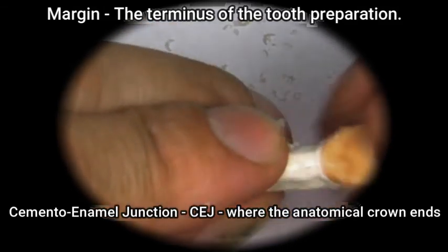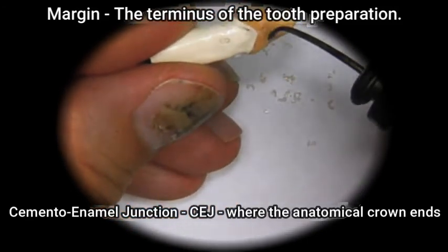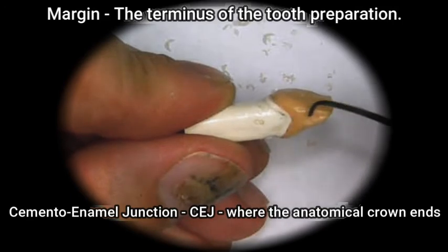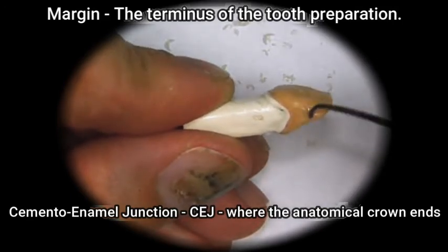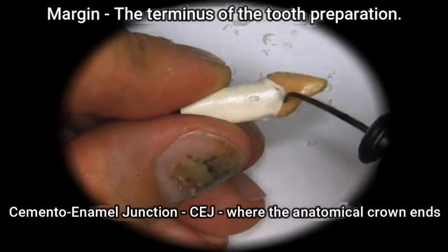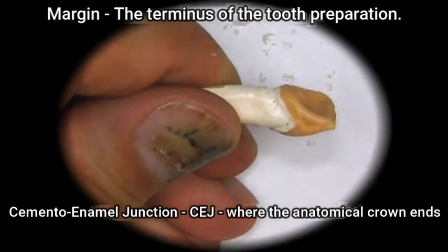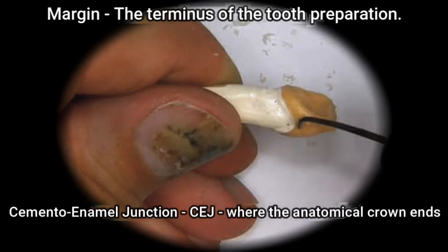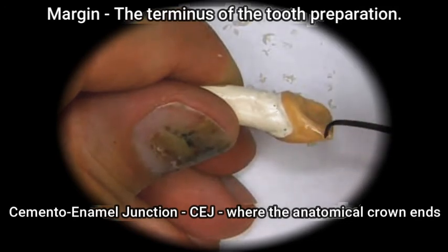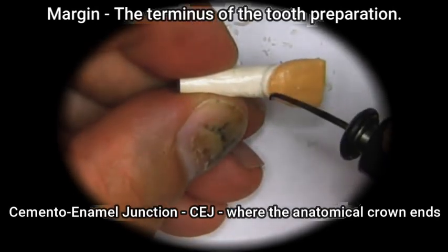So now we very carefully heat up the instruments and try to flow just enough wax into, this is the distal portion, this is the mesial portion. So we have to do just enough wax right here.